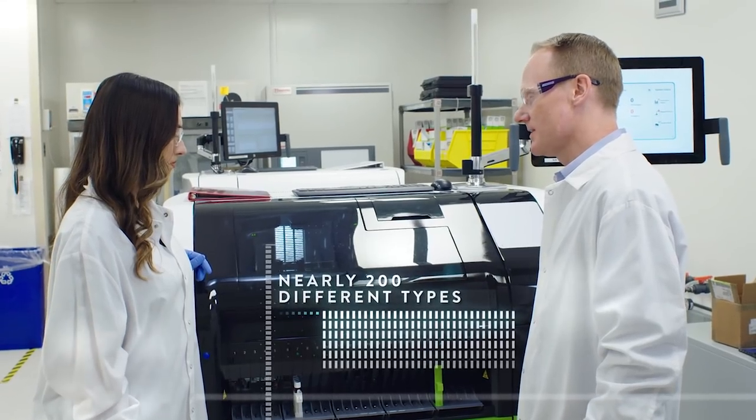Robots, magnets, photons, and formulas just to tell you what's in my blood. And what's really incredible, the system can handle 200 different types of tests and generate thousands of patient results in an hour.